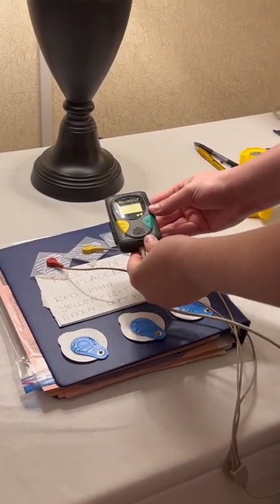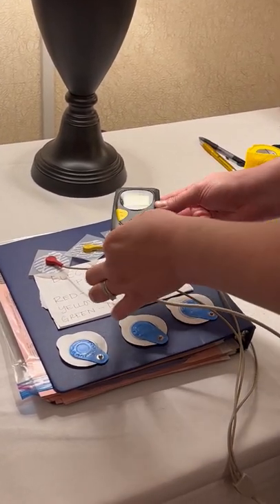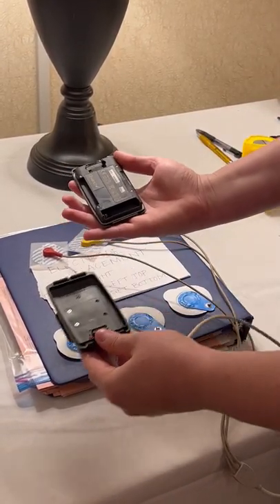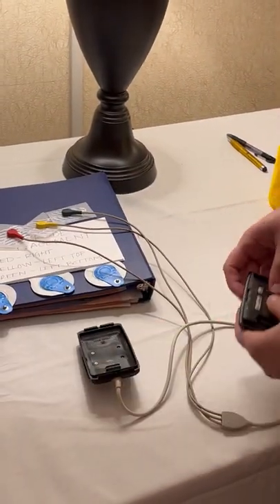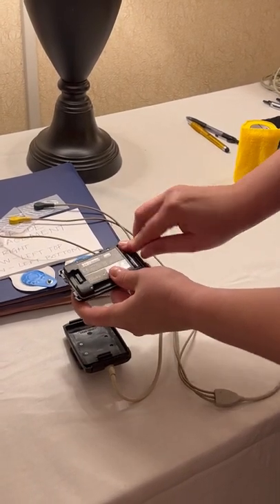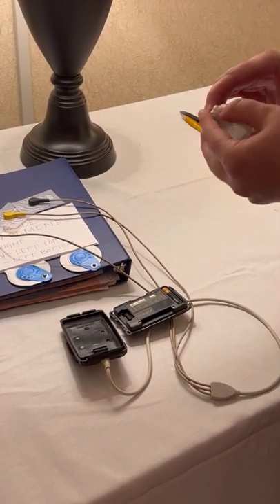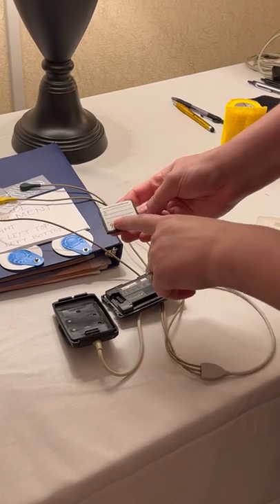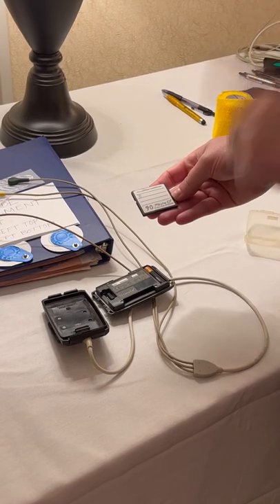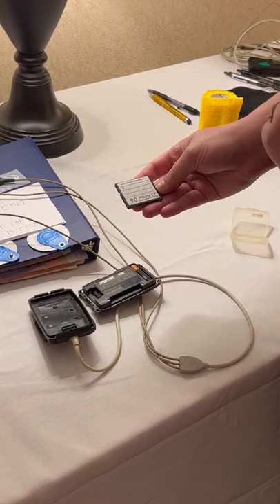This part covers programming and setting up the Holter device. The cord attaches here. On the bottom there is a little lever — if you pull down on that lever, the whole piece comes apart. This is the side where you put your battery in; AAA batteries will be provided. That goes in the spring. There is also a memory card that will be provided. We'll have you write down your dog's name so we know which dogs are on that memory card, on a sticky note or piece of paper included with the device.